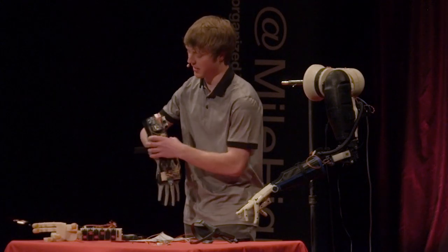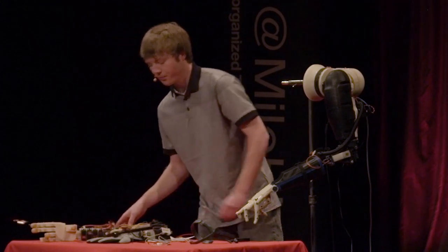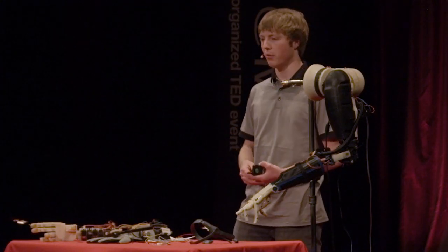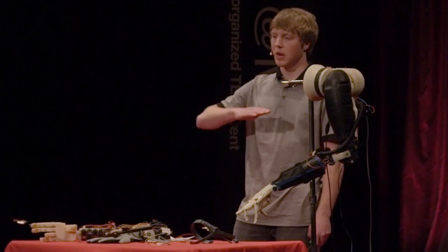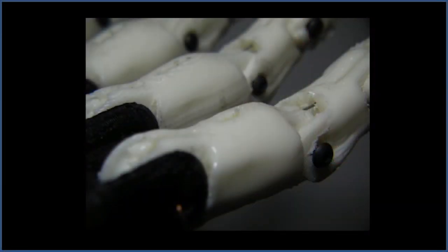It heats the plastic to its melting point and extrudes it. Based on your CAD model, it prints layer by layer until you get a physical form. This allows human-like designs that are light, durable, and affordable.